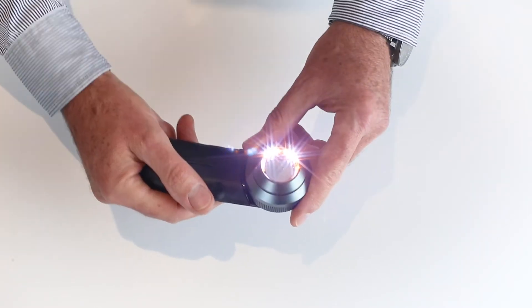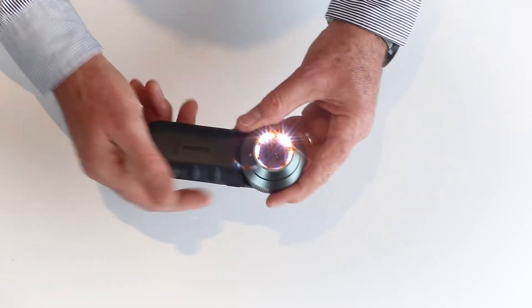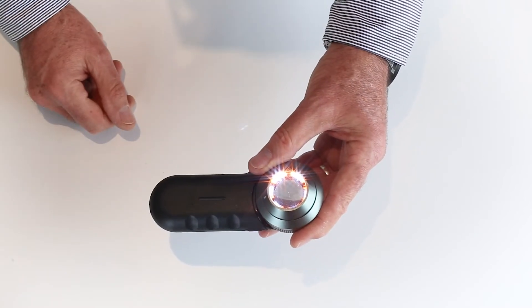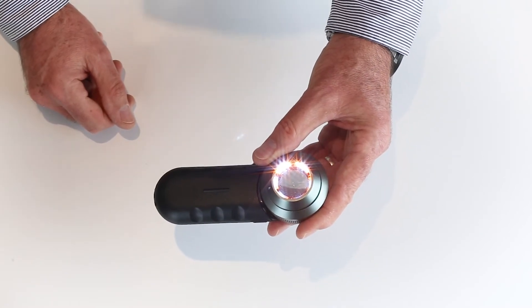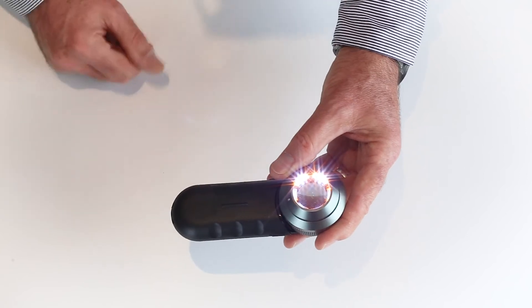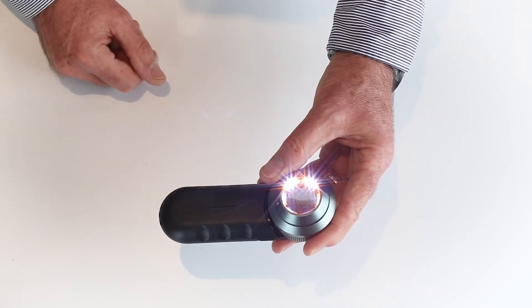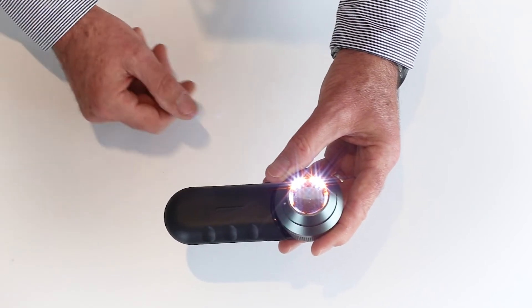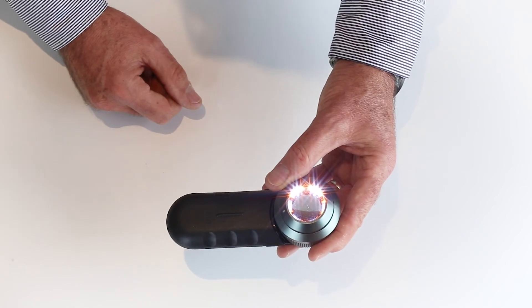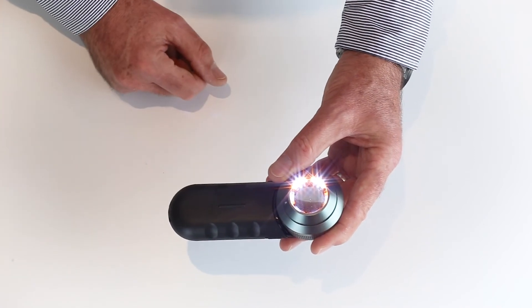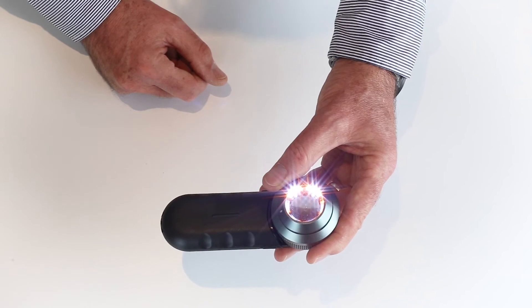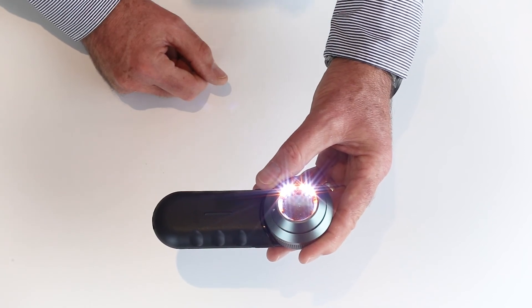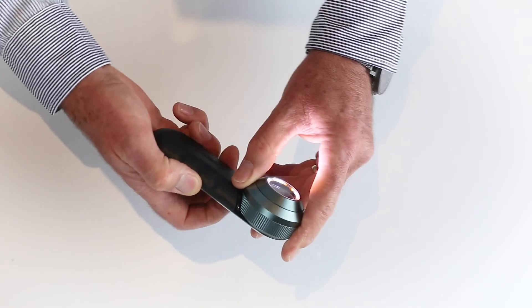Once you've finished using the DL3N, clean the contact plate with an alcohol swab. When it's dry, just buff that with a dry lens cloth. The contact plate can't be removed on the DL3N, so cleaning it is essential. It doesn't have any disposable covers, so once again make sure it's been cleaned at the end of use.